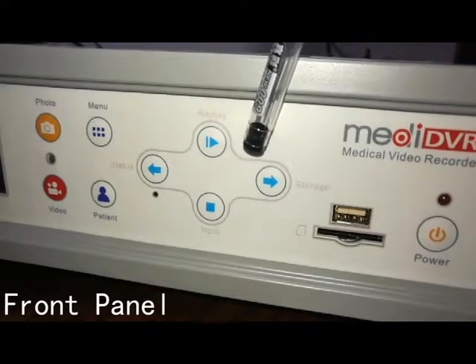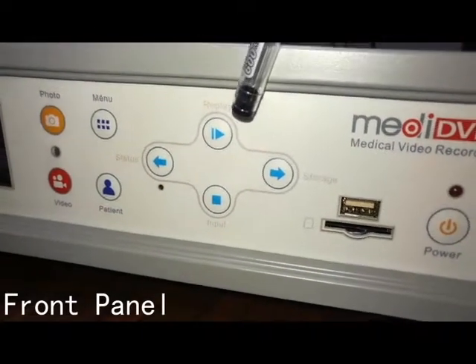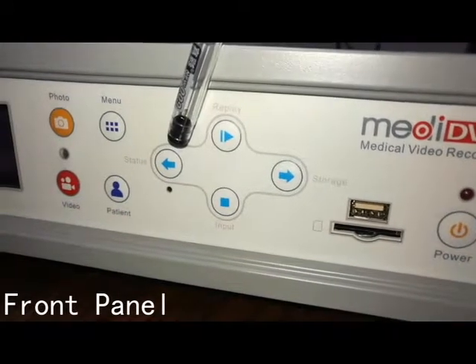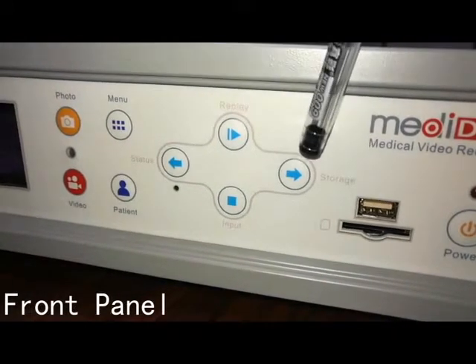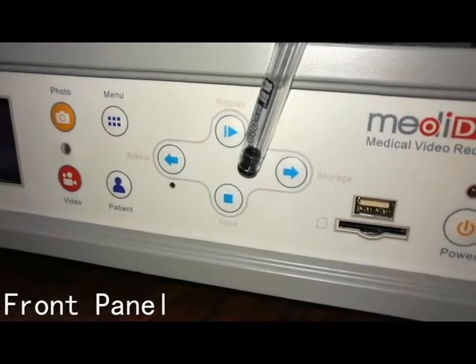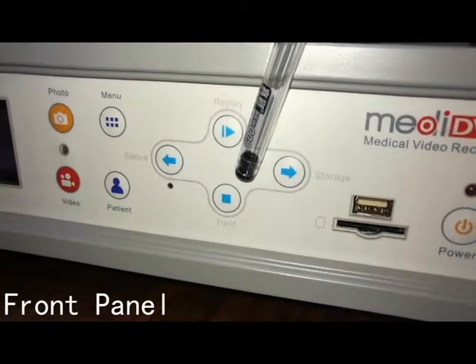Press Replay to replay videos. Press Status to see the version information. Press Storage to select storage media. Press Input to switch input signals.